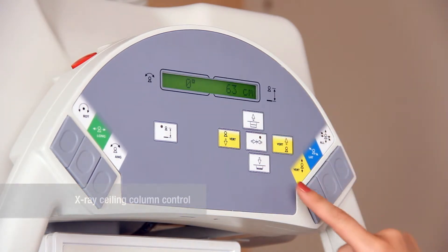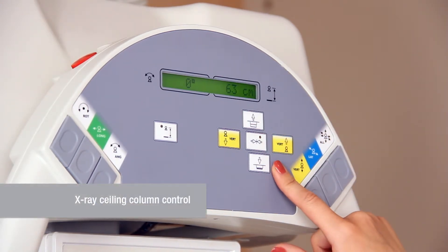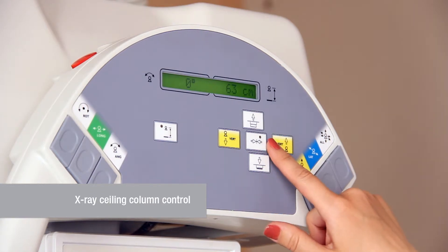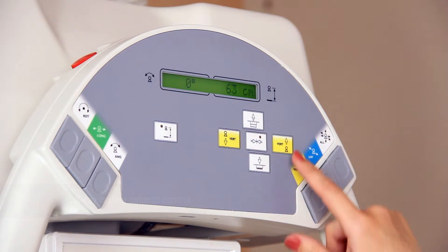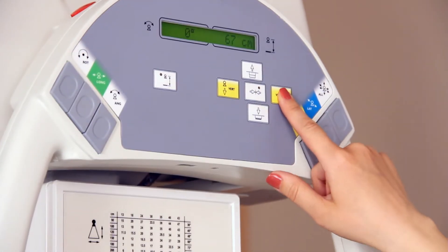The simplicity in operating the column is combined with the ergonomic design of the column handle, making it easy to set the tube for different types of examinations.